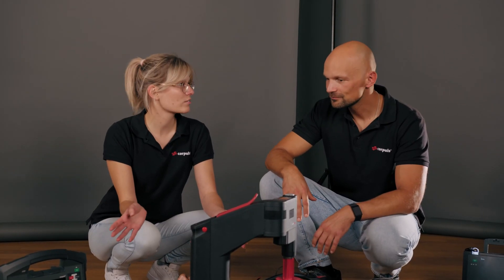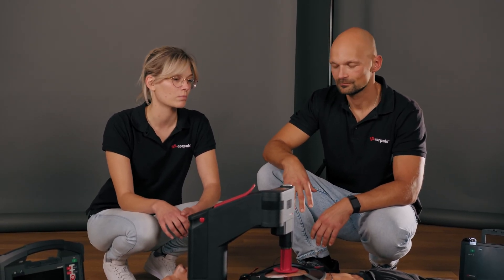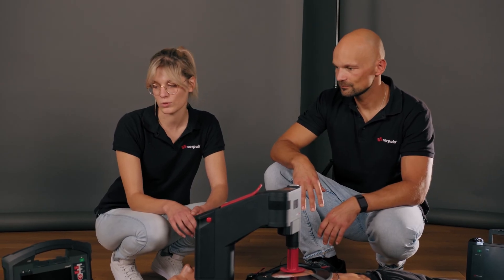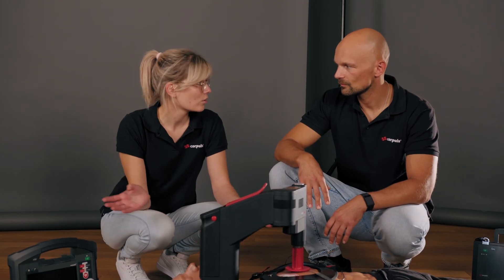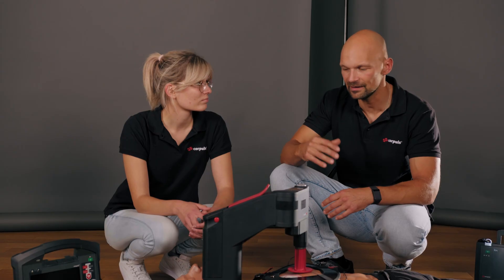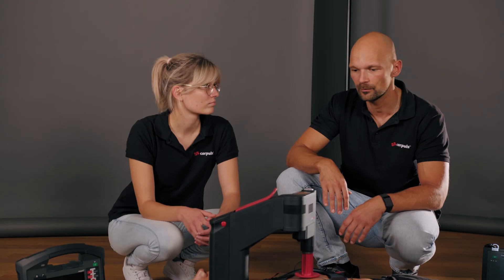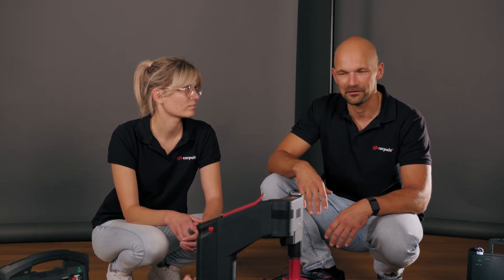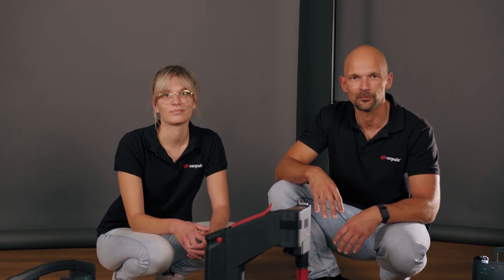As a quick final summary, we have found that the whole thing works well in AED mode and very well in manual mode. If you are using both devices together, you need to keep in mind that you must be trained in both devices. We consider regular training to be incredibly important. High quality BLS is a core element of ALS measures. We hope this video has been educational for you, that you had fun watching it, and we look forward to seeing you again for the next tutorial.